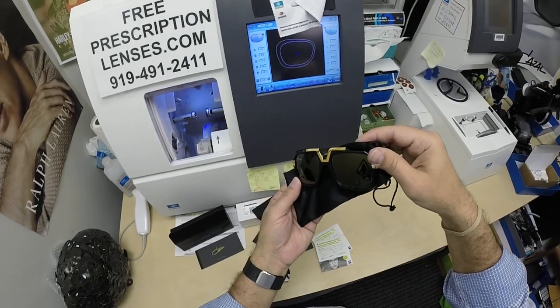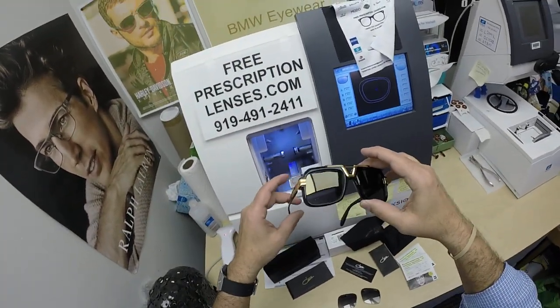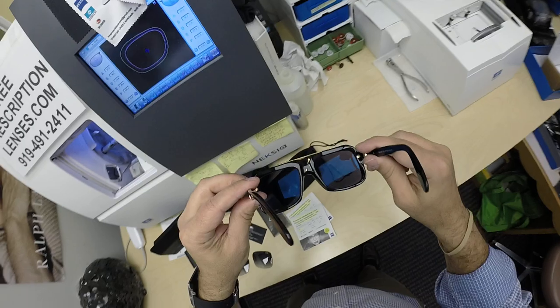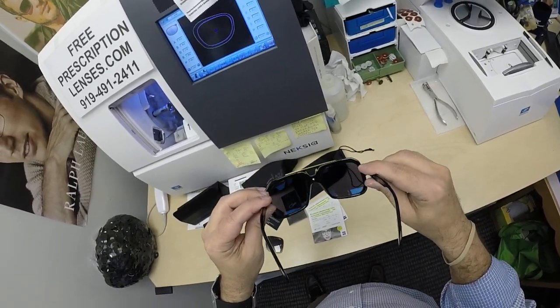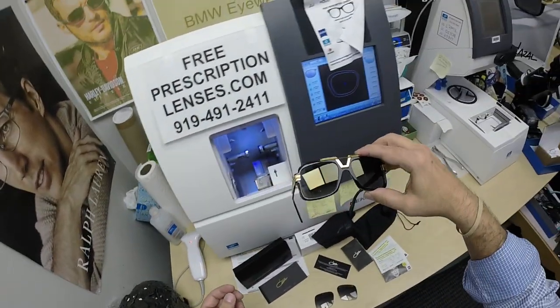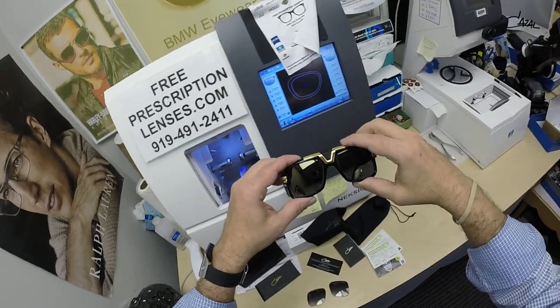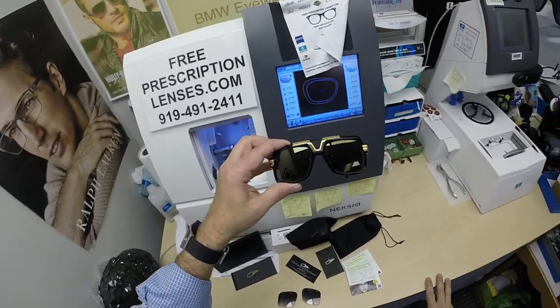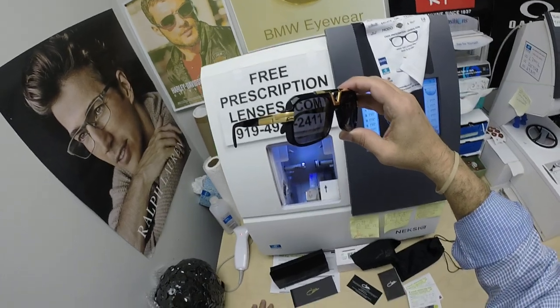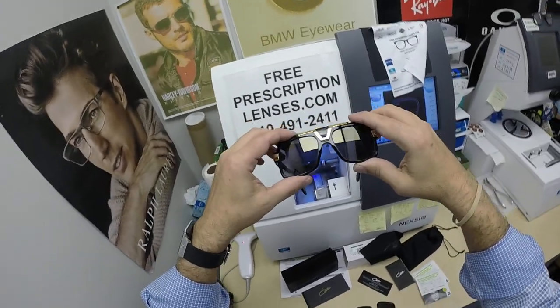You've gotten the German lenses to match it. Now you can see that greenish color on the back of the lenses — you don't see the gold anymore on the back, but you do see the gold on the front. That greenish color is the DuraVision Sun back-surface anti-glare coating. The Zeiss Extra Dark Gray will get darker in hotter weather — they're designed for extra active people who spend extra amounts of time outside. If you live in a hot climate like Phoenix, California, Texas, or Florida and you just want the darkest lens possible in the hottest weather, go with the Photofusion Extra Gray.